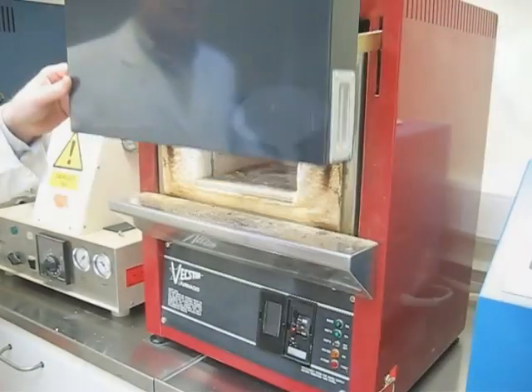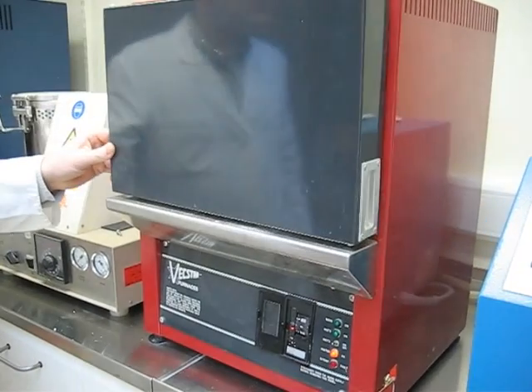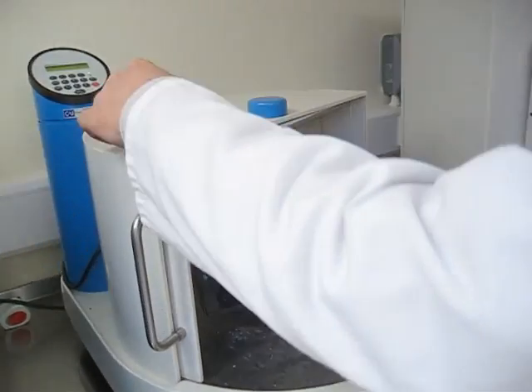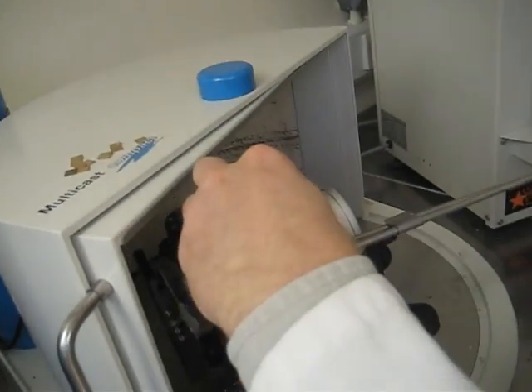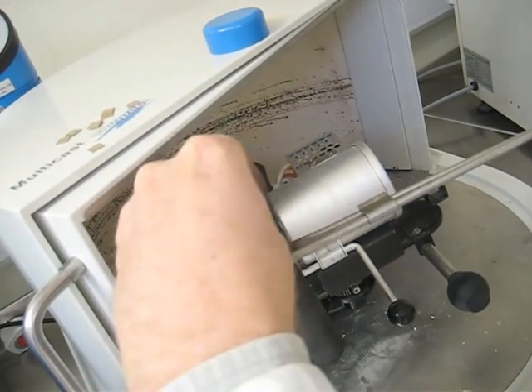Now some people get a little brush and paint the refractory onto the occlusal surface and fit surface of their pattern and then fill the mould. But it tends to be a bit over fussy. That's set for about half an hour and then into the furnace at about 650 degrees. It goes up to 650 degrees and it heat soaks in there so it wants to get up to temperature and then be in there for another 45 minutes or so.